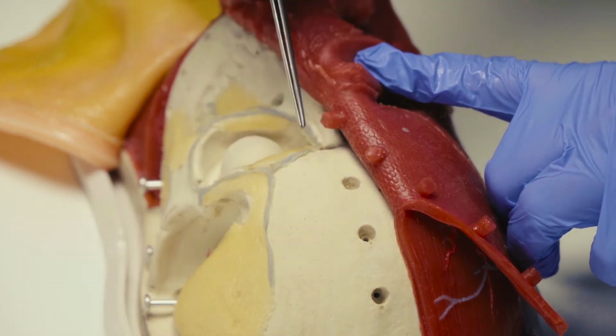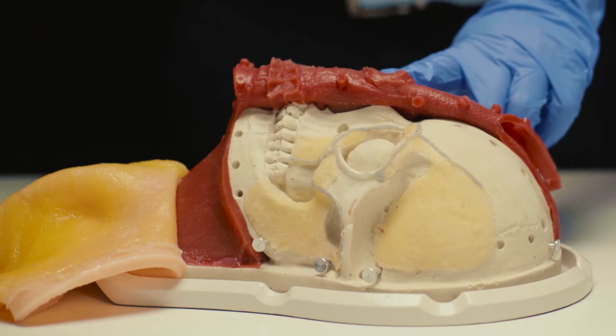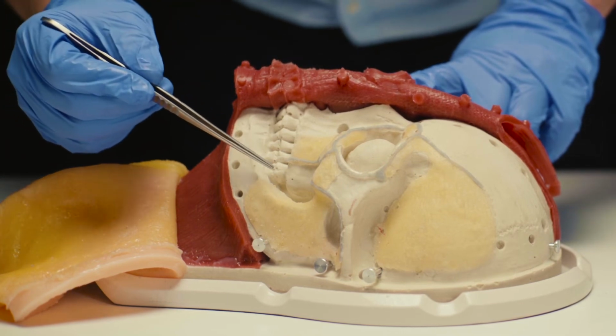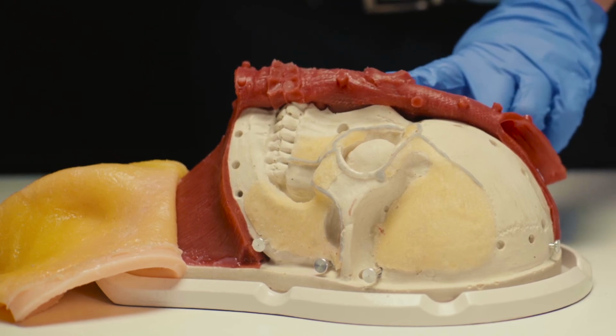And finally, there is the bone layer, that is the 5th layer. So, from the first layer, epidermis and dermis, to the 5th one, bone, you can have all the layers in the face and teach very easily the anatomy resumed in this unit to students and doctors.